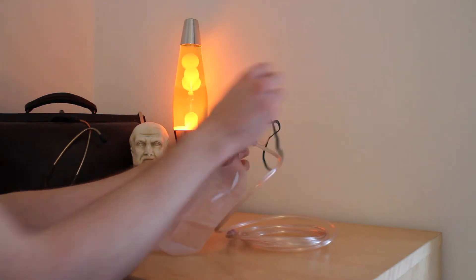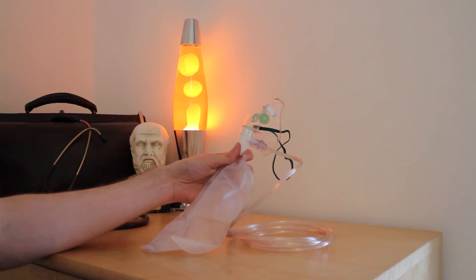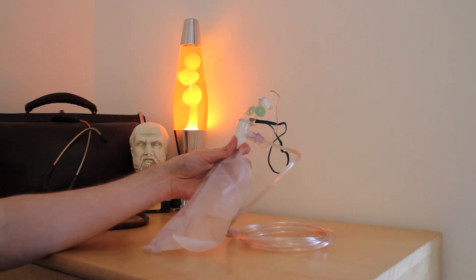The indications for its use include patients in whom you suspect that there may be some degree of respiratory compromise. In particular, if you think a patient is hypoxic and you need to deliver oxygen quickly, this is the mask of choice.